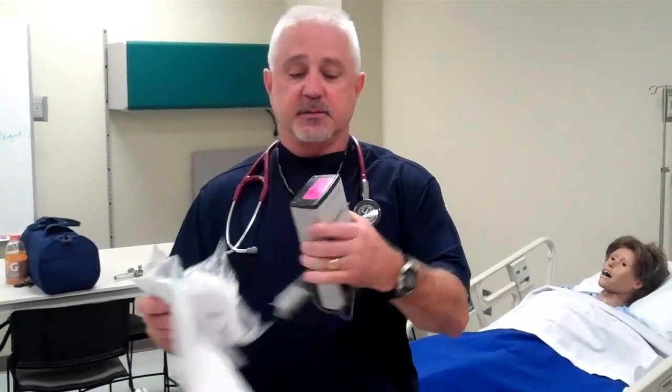Hi, this is Alan, and I'm doing an oxygen checkoff for a nasal cannula setup. First thing I'm going to do, when I get the requisition, is gather my equipment. I have a nasal cannula, a pulse oximeter, my watch, and my stethoscope.